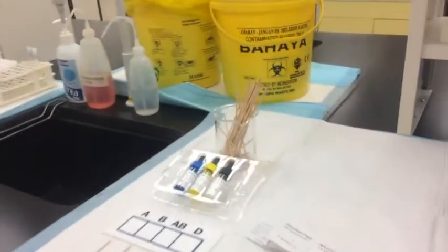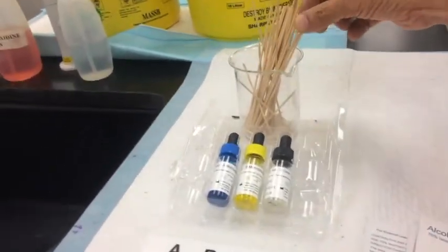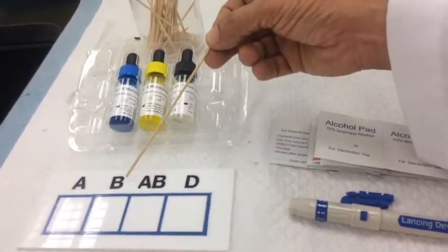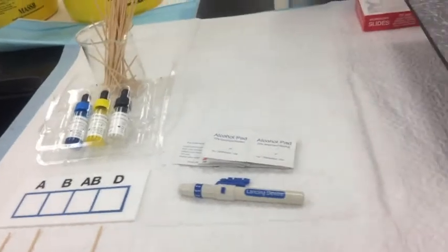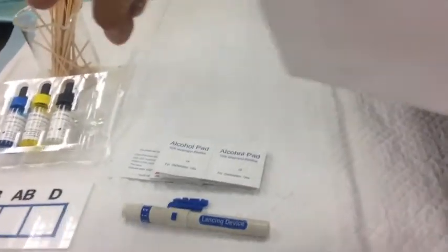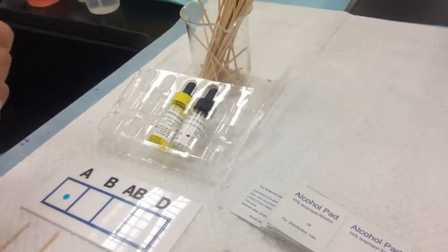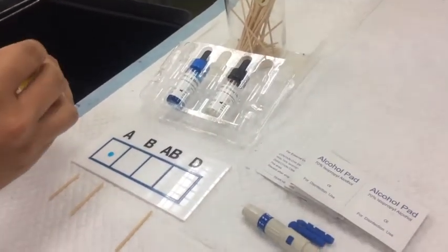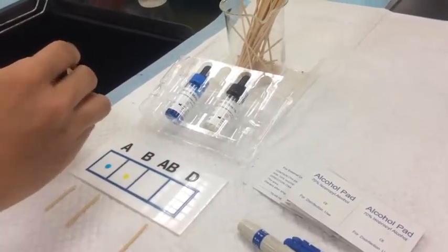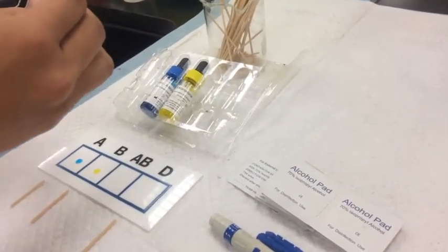First of all, we are going to be labelling the slides as shown. They are labelled as A, B and D. Now we are going to be adding the anti-sera on each of those. Anti-A is added onto the labelled area A — just a drop of the anti-sera, which is blue in colour. Anti-B is yellow in colour. And anti-D, which is colourless, is applied onto the place where we have labelled it as D.